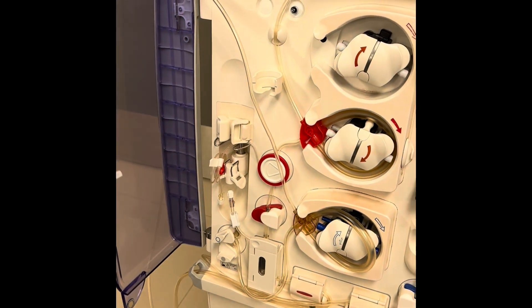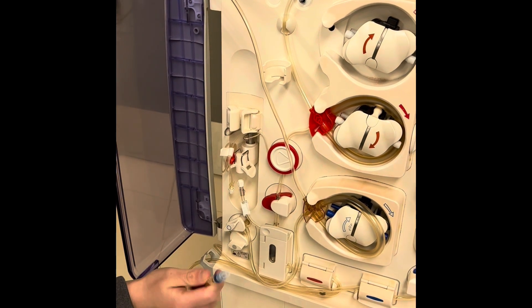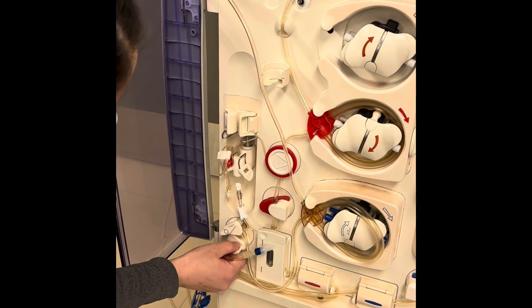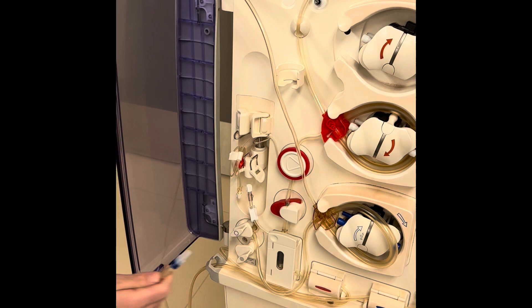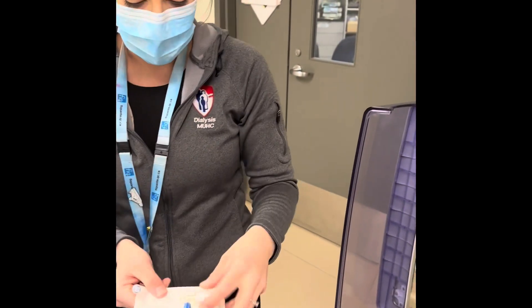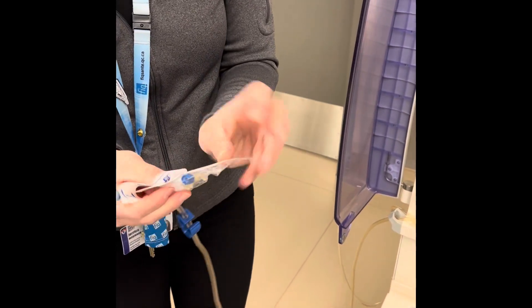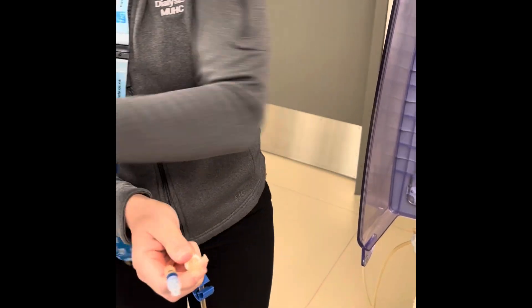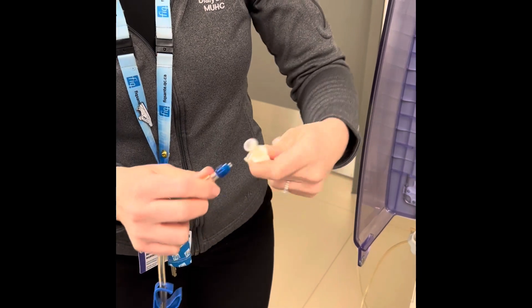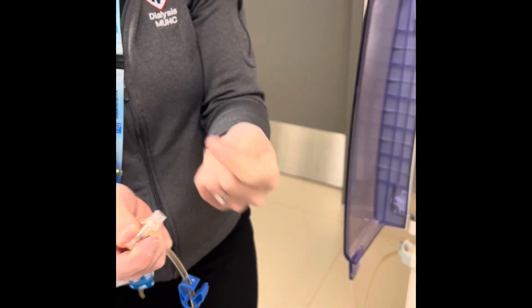Now you're wondering what to do for the venous segment. Your venous bloodline is going to be on your rinse port — we're going to pull back and pull it down. To get it disconnected, you're going to need this connector tool, which is in the packaging of your tubing. I'm going to open it, remove the cap, and attach it like this. Now I'm going to remove this piece — my hands cannot touch it — and place it so it's held in place.